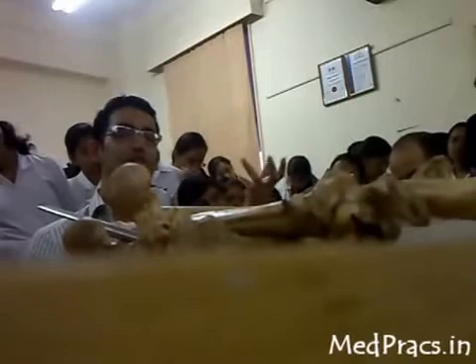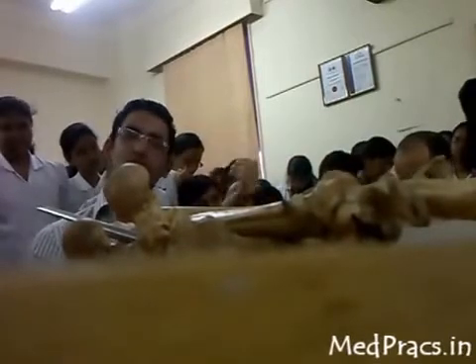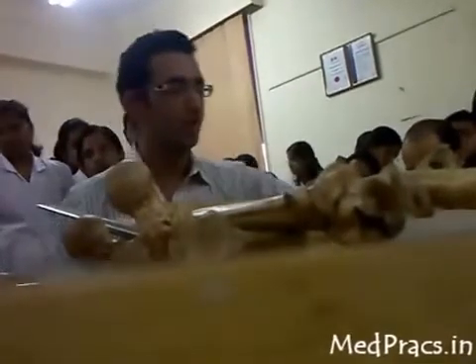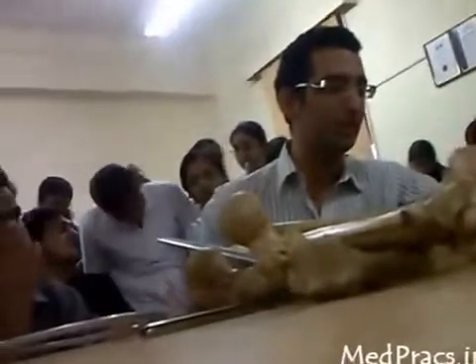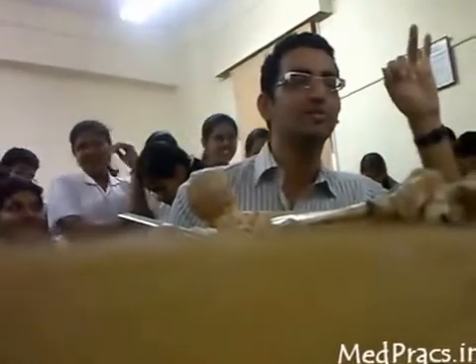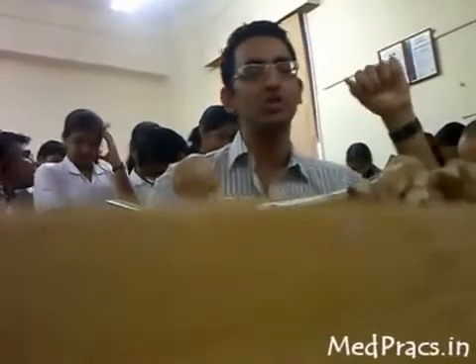Skin traction uses: applied in intertrochanteric and pelvic fractures; used in neck of femur fractures — called Buck's traction (B-U-C-K apostrophe S); also used when there is joint effusion requiring immobilization (knee effusion, hip effusion). Sometimes used for fixed flexion deformity (FFD) of the knee where hamstring spasm prevents full extension.